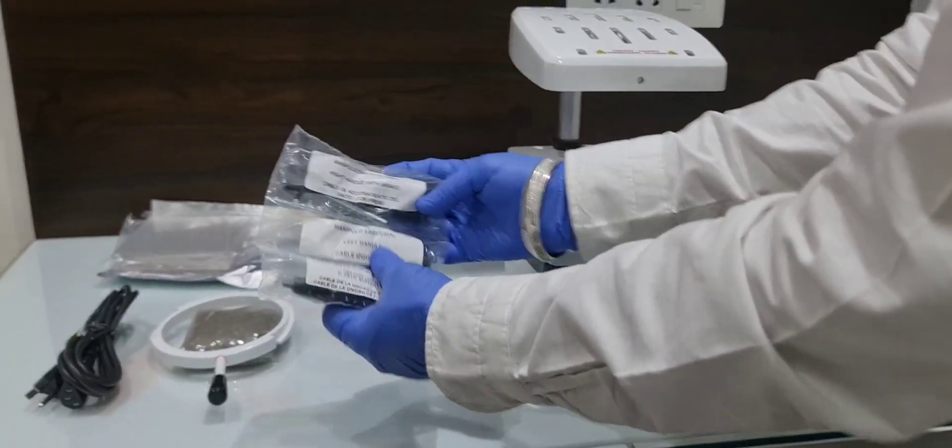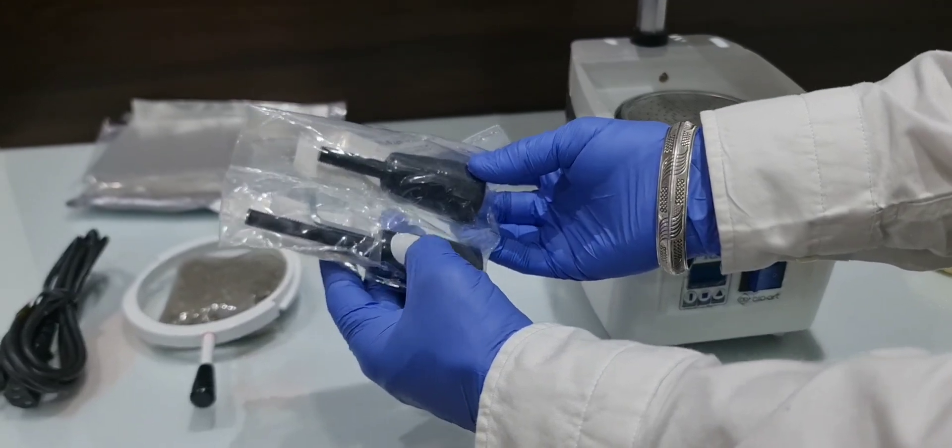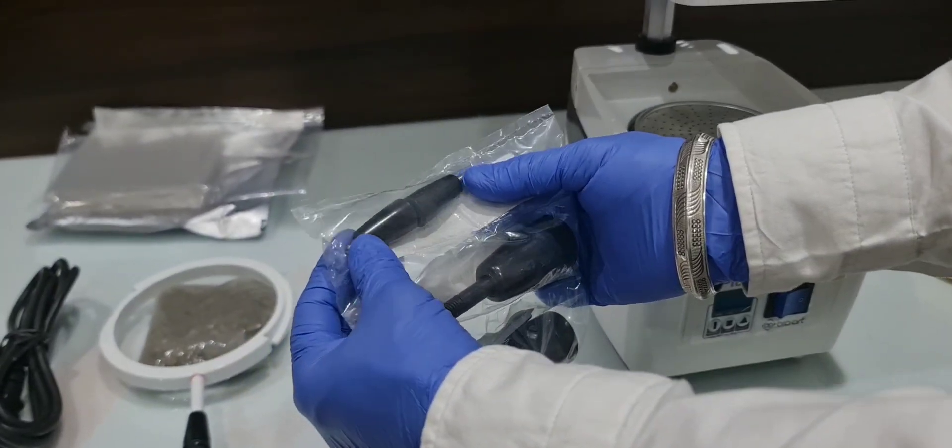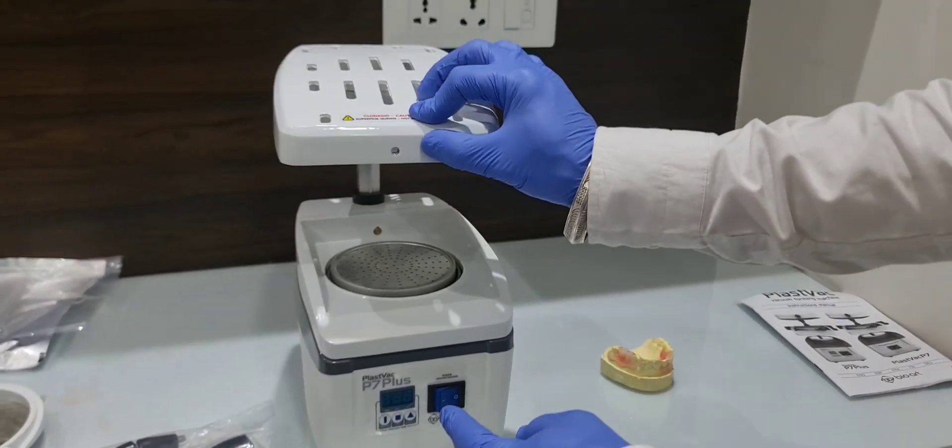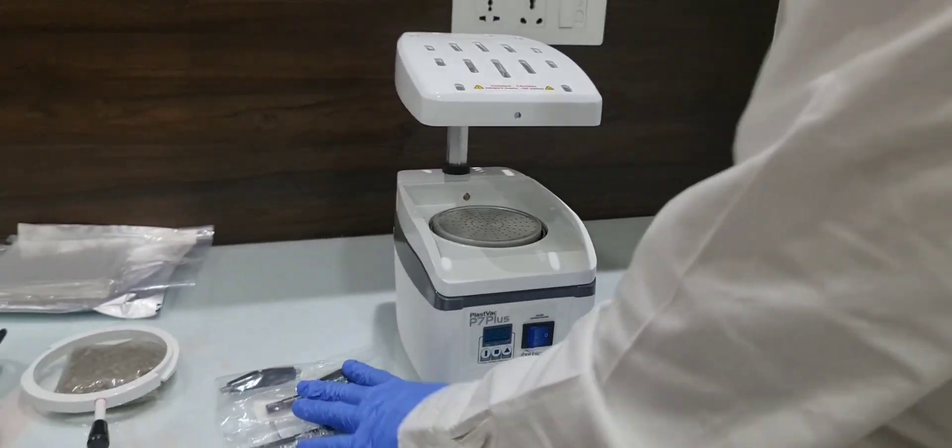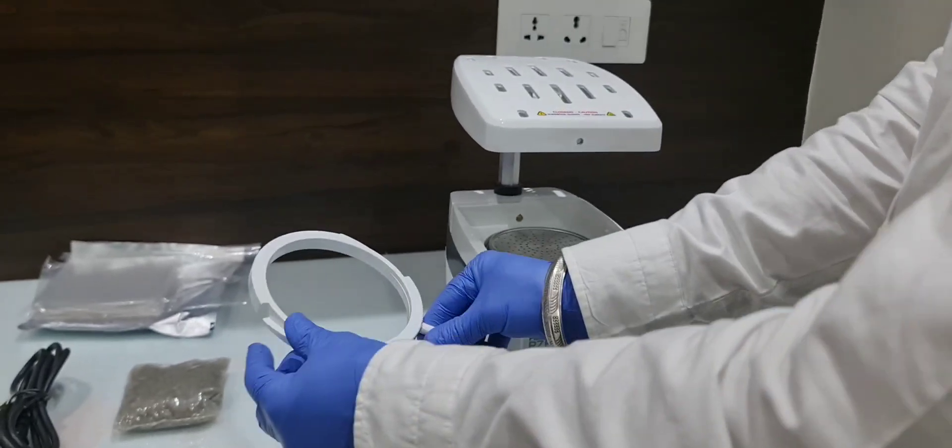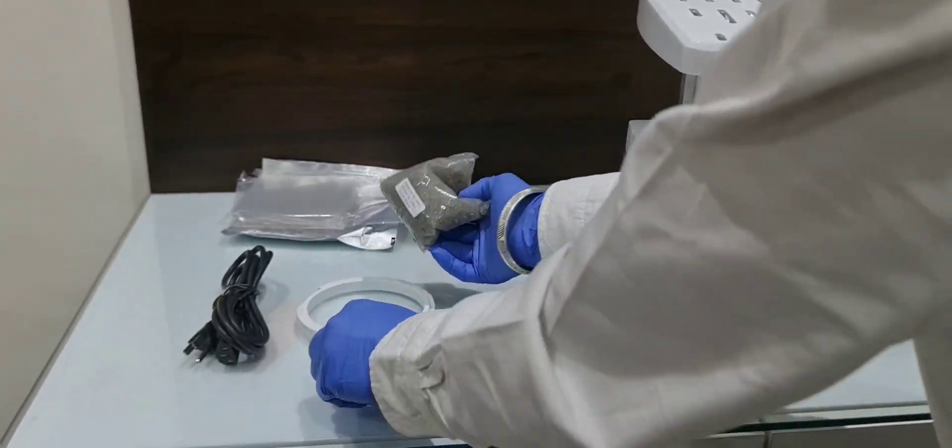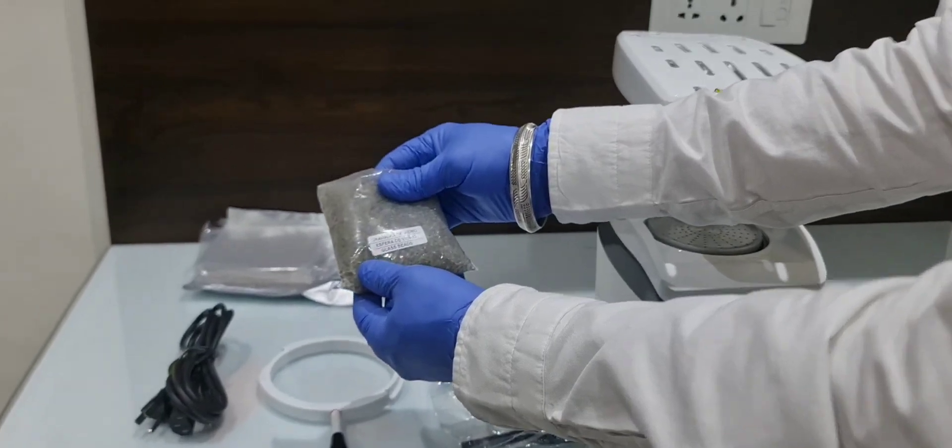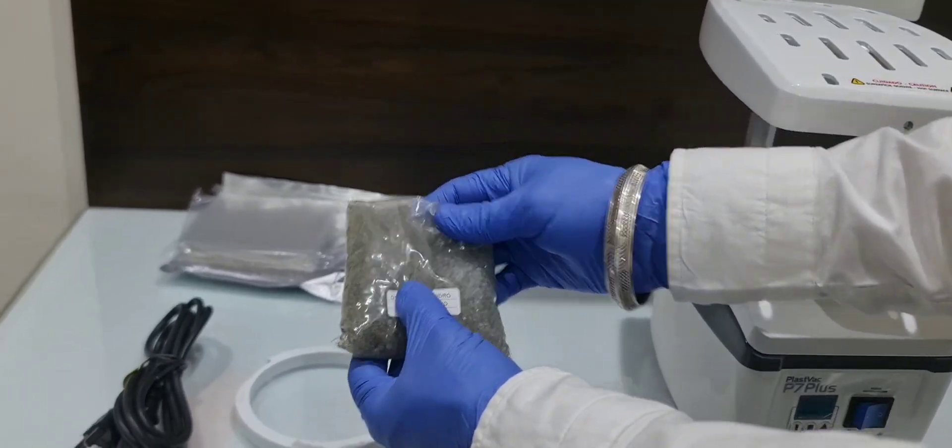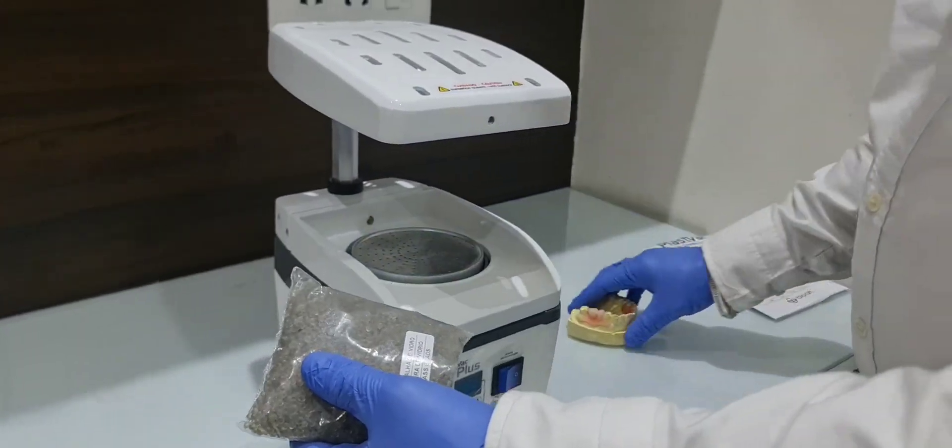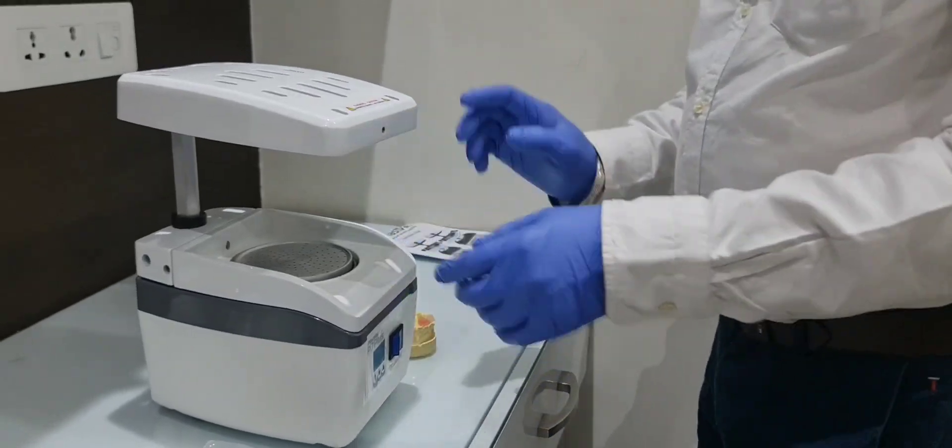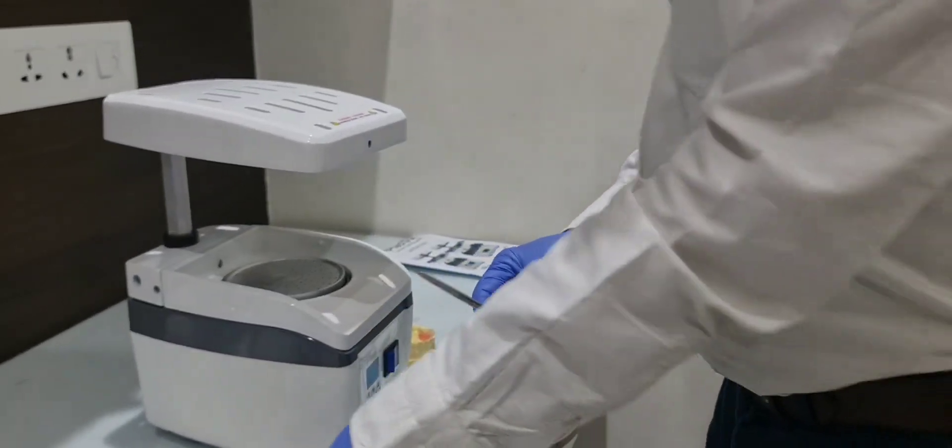It comes with two handles for left and right, and two more handles for the tray in the upper part. These are to lock the vacuum forming sheet, and these are the granular glass beads. You can use glass beads for the mold, or without also you can use. This is the power cable. Now I'll show you first, fix up the parts.